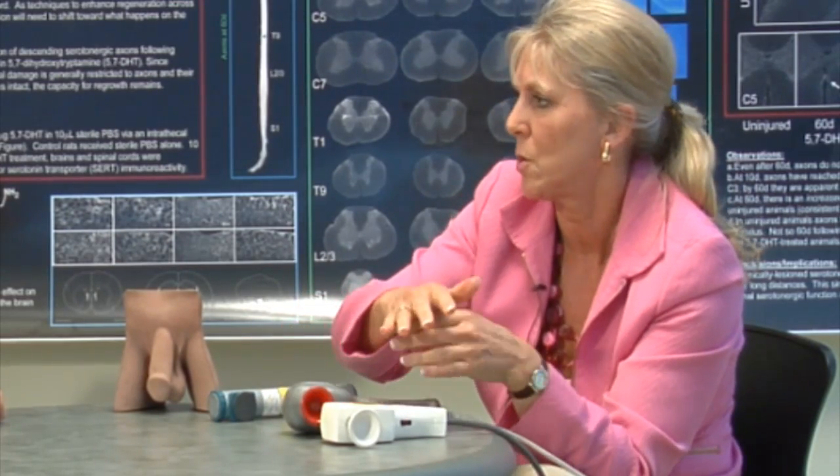Not very sexy, but that said, some patients work with this device, some work with that one. Some patients work with Hitachis or thumpers they've found. Usually, though, they're too slow — you need something that will go quite quickly.